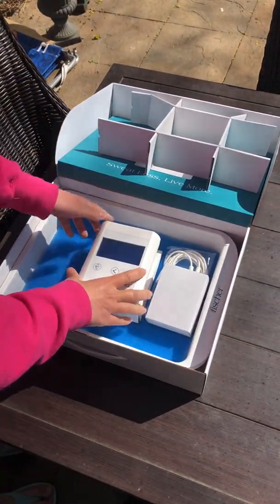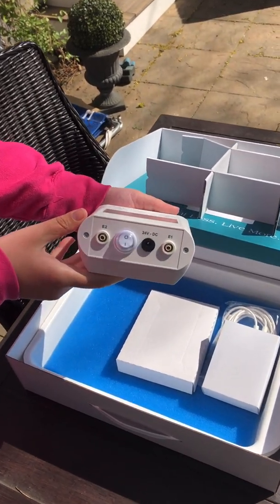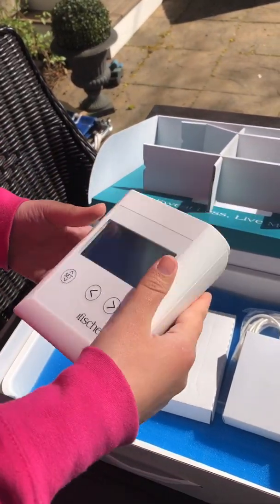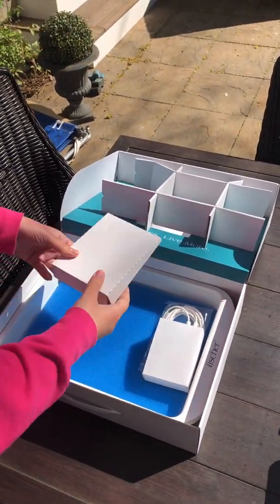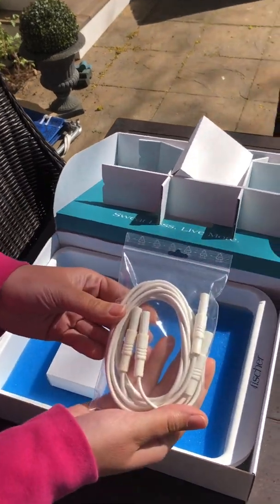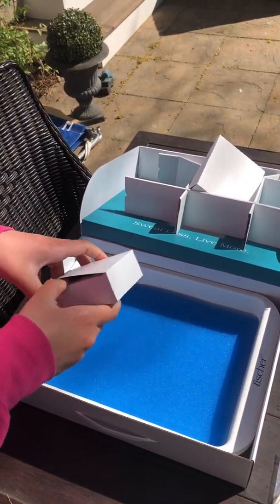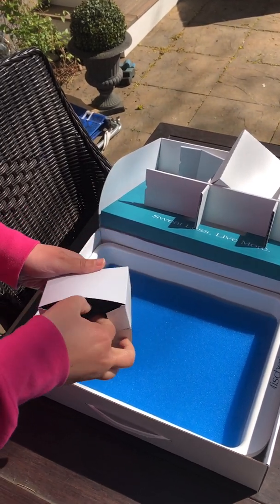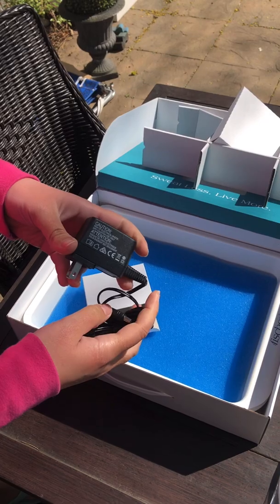Here is a close-up look at the machine. It's super small and compact. The buttons on the back are the power and cable connections, and speaking of cables, I noticed this doesn't use the standard red and black electrode cables common with most units. It comes with two identical white electrode cords. The power unit is also more compact and resembles an electronics charger versus the standard big bulky cord.